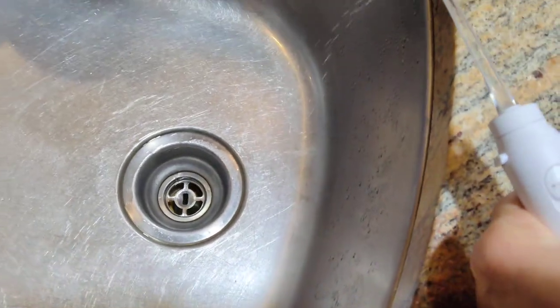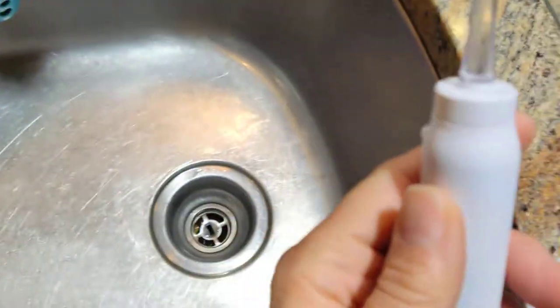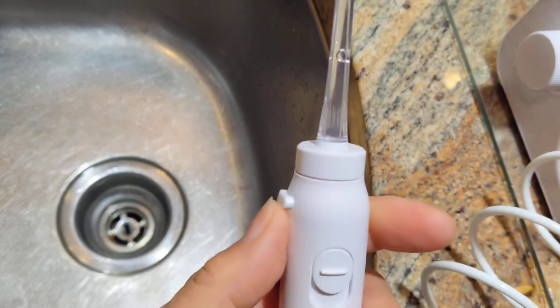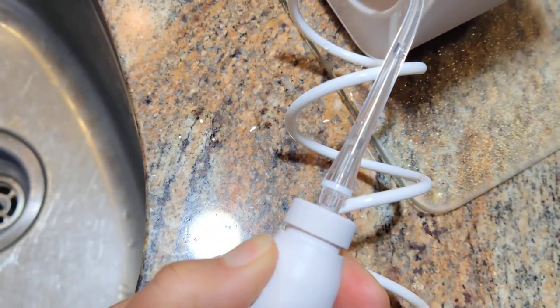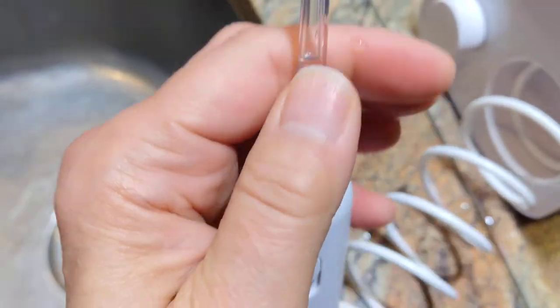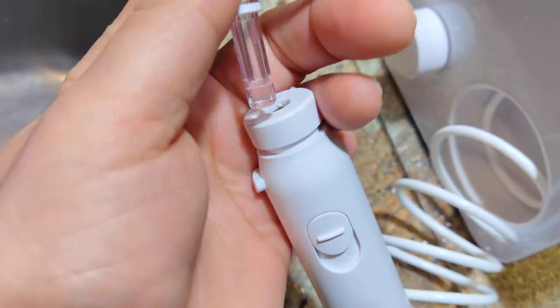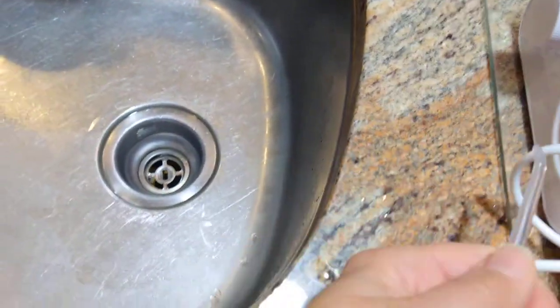Let's turn this off. Taking the tip out, there's a button right here. You just press the button and it releases the tip and you can take it off and switch it out for another one. These also rotate.